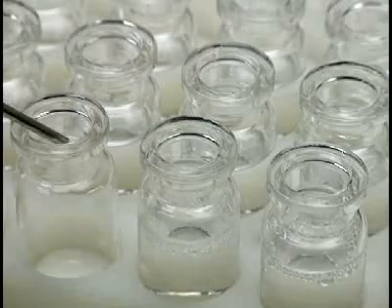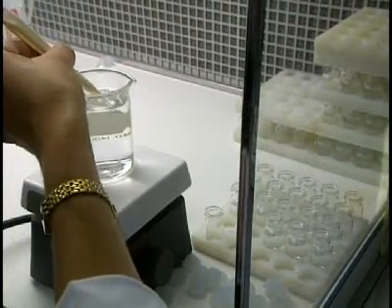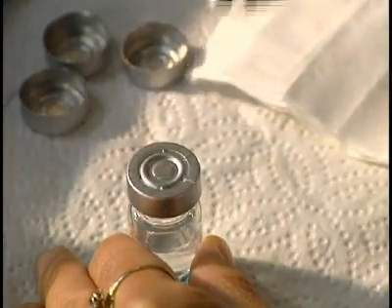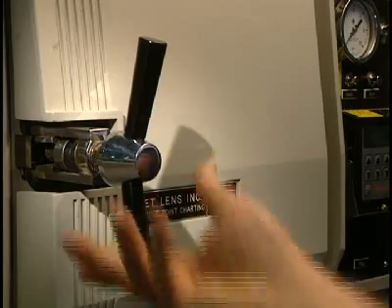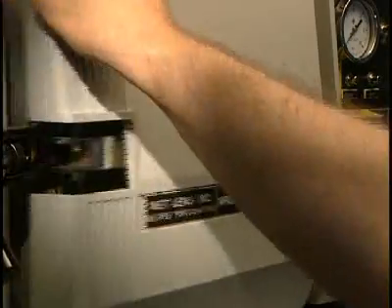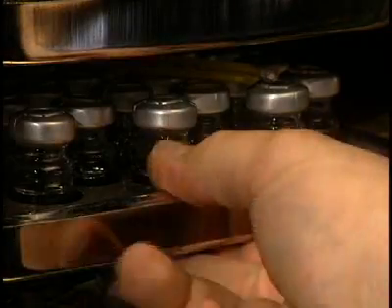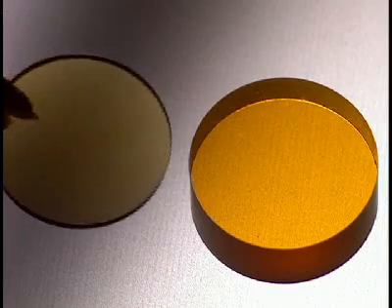Lenses are now completed and are cleaned, then stored in containers filled with a salt solution. This little vial, found at the optometrist, is perfectly sealed with a silicone cap and another of aluminum. These vials are placed in a sterilizer at a temperature of 121 degrees centigrade for an hour and a half. The contents will remain sterile for a period of up to seven years if not opened.